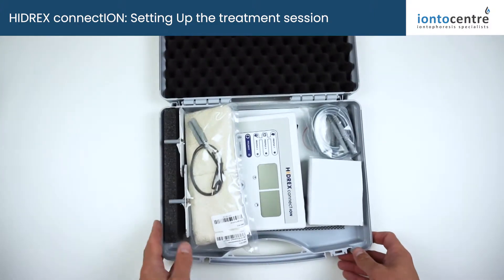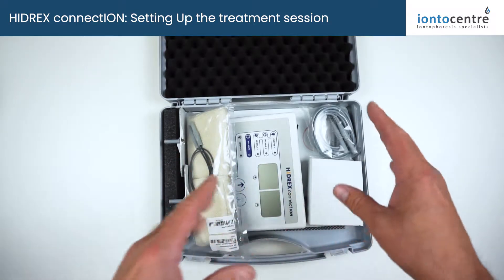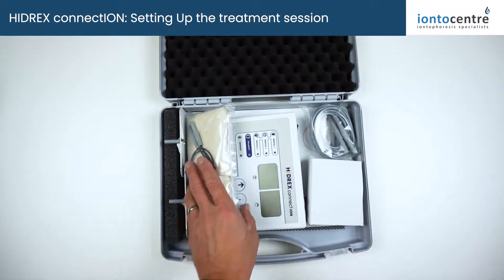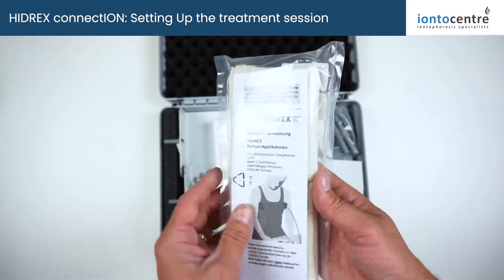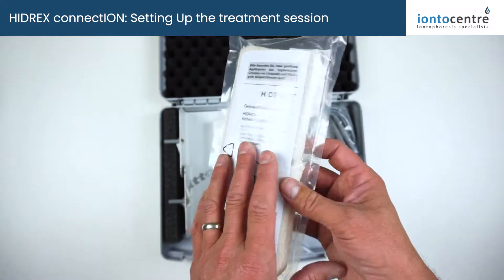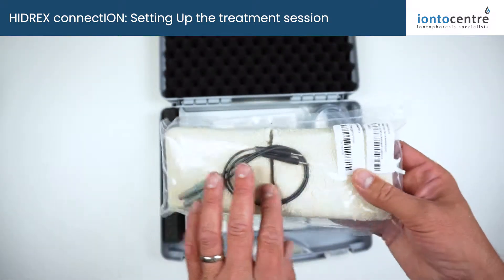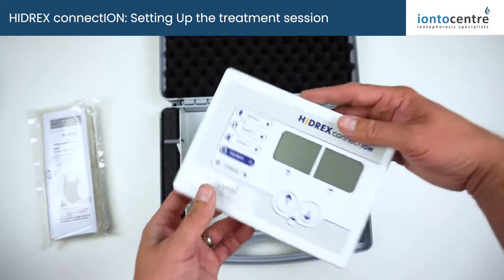When you open the pack up, inside you'll have the electrodes, the machine, the control panel, and the power leads — everything that you need, or everything that you chose when you ordered it. The underarm electrodes are an optional accessory which enables you to perform underarm treatments. They come with their own instruction pack, they're sealed for hygiene, and it's a complete system — you've got the cables, silicon electrodes inside, and sponge covers which you soak for treatments.